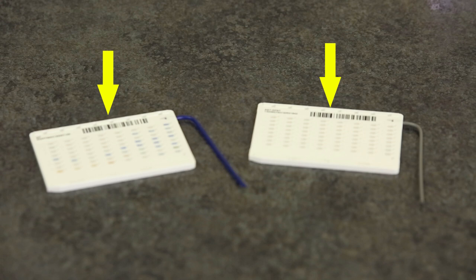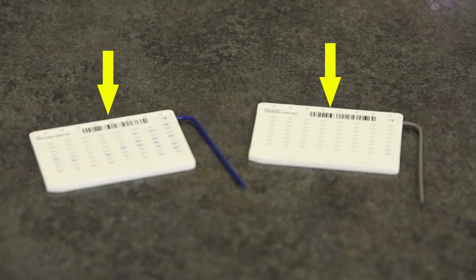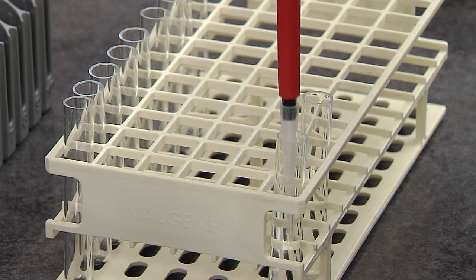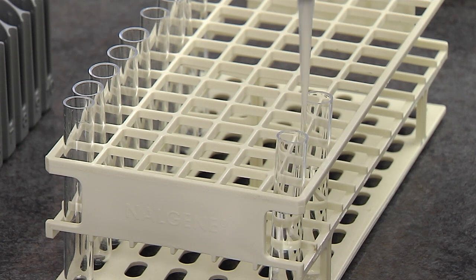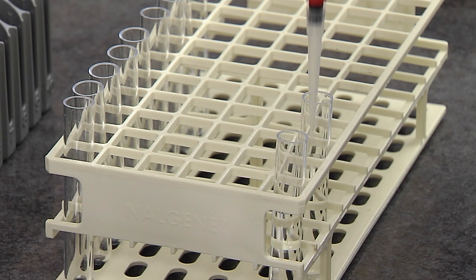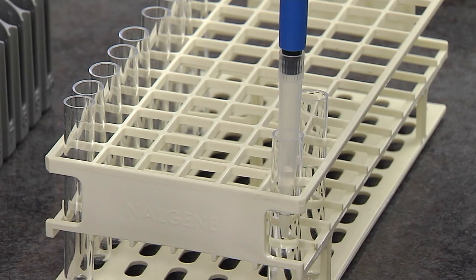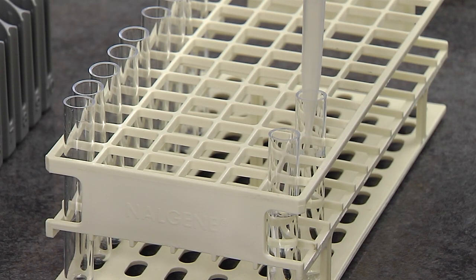This suspension is used to inoculate the AST card. For the AST suspensions, 145 µL of the ID suspension is used for a gram-negative card, and 280 µL is used for a gram-positive, strep, or yeast card.